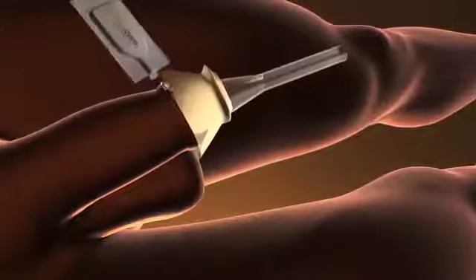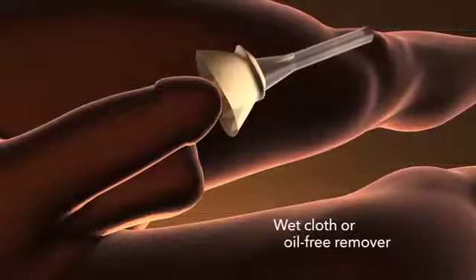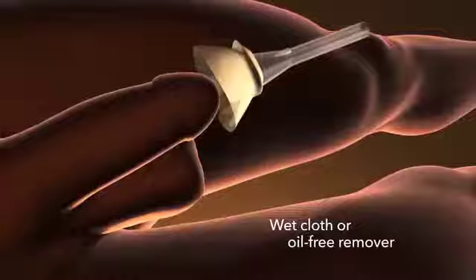If Free Derm is not available, consider using a warm wet cloth or an alternative oil-free adhesive remover that does not leave a residue.